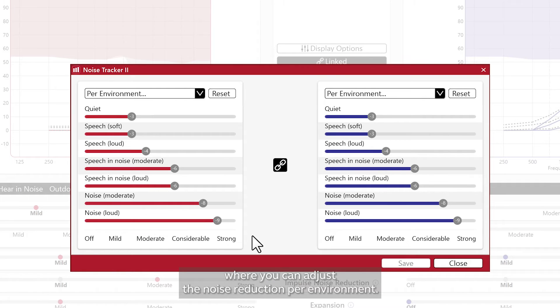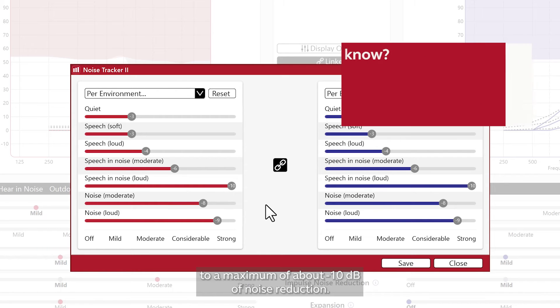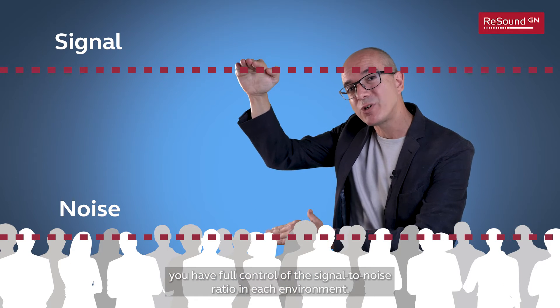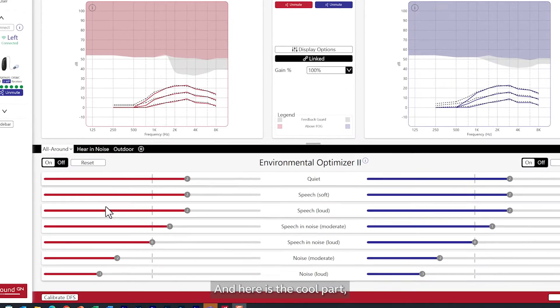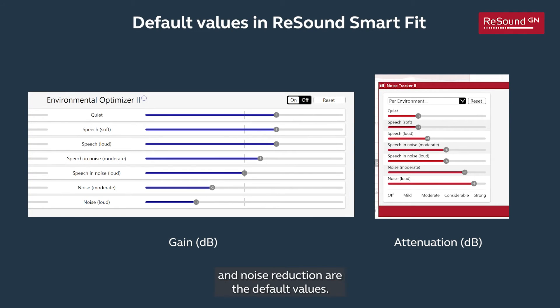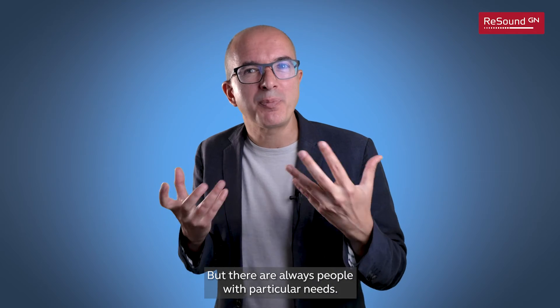Click on that icon and it will open a menu where you can adjust the noise reduction per environment. This setting goes from zero — that's no attenuation at all — to a maximum of about minus 10 decibels of noise reduction. In other words, with the Environmental Optimizer you have full control of the signal-to-noise ratio in each environment. You don't have to do overall changes, which are always complicated; instead, you can adjust specific environments as needed. Every program has its own Environmental Optimizer, and from my experience, the default values are great and most of the time you will not have to make any changes.